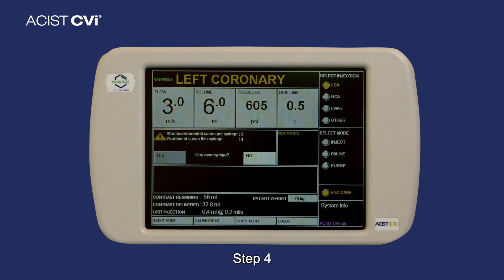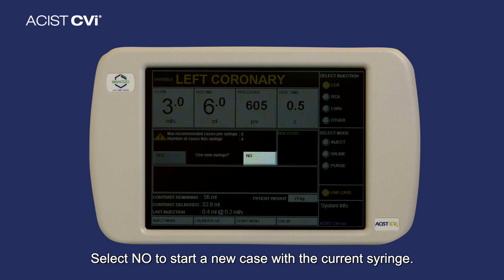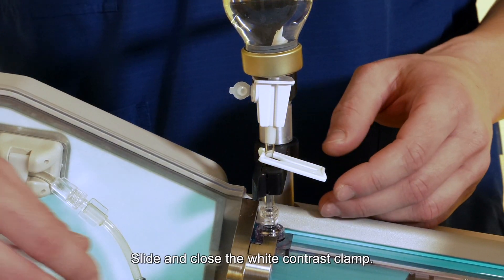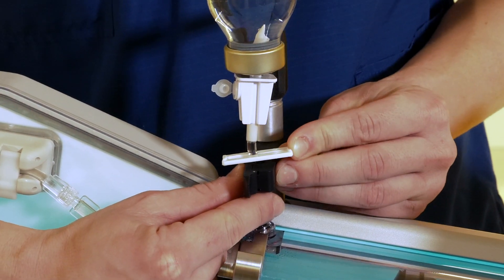Step four: select No to start a new case with the current syringe. Step five: slide and close the white contrast clamp.